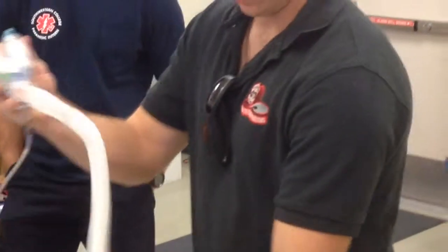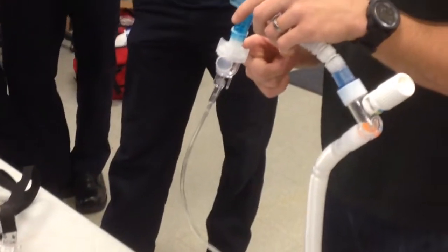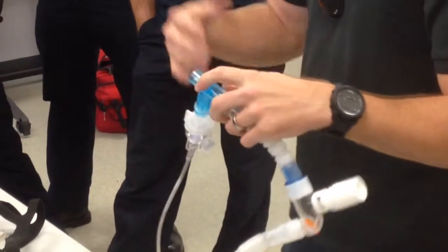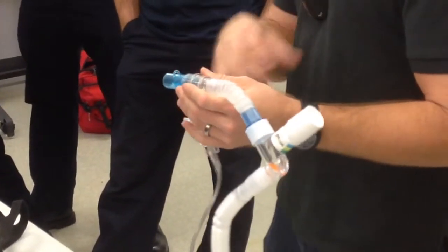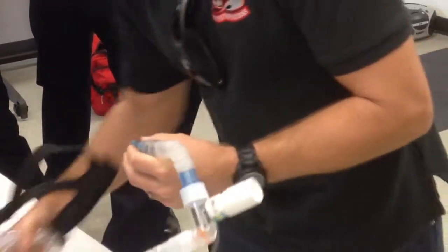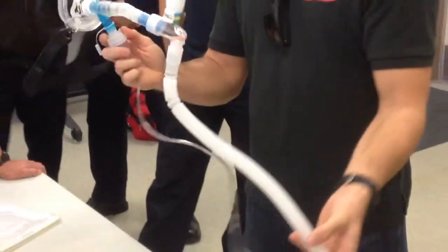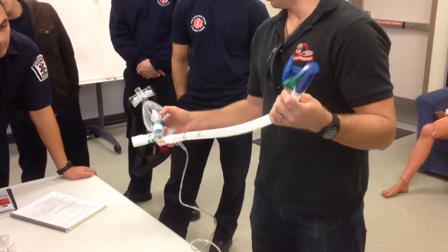Now, you have this connection, right? What is the liters per minute for this? 4 to 6. 6 to 10. 6 to 10. Start with 6. Evaluate the effectiveness of your medication, and then adjust it accordingly. Okay? And then this is going to go to your CPAP, right? And there should be another adapter. Actually, okay? So, like I said, this connection is a little bit different.